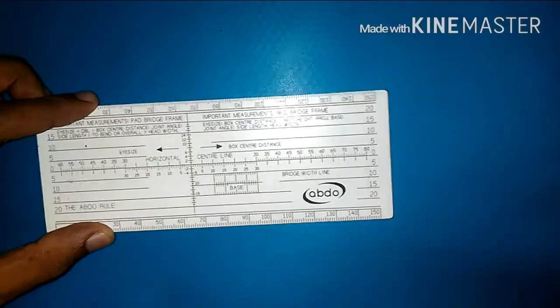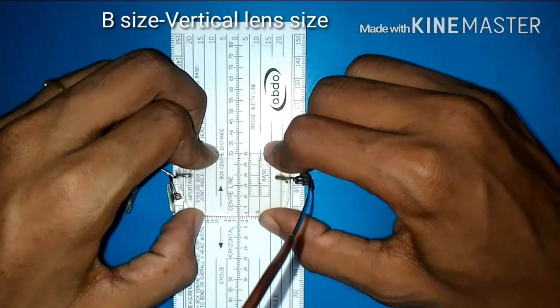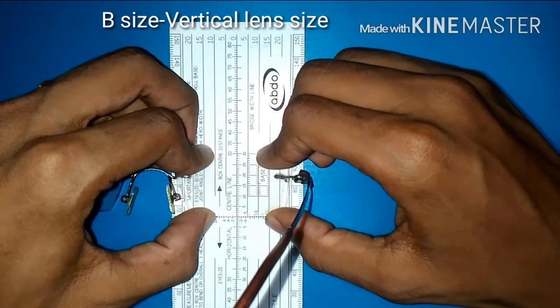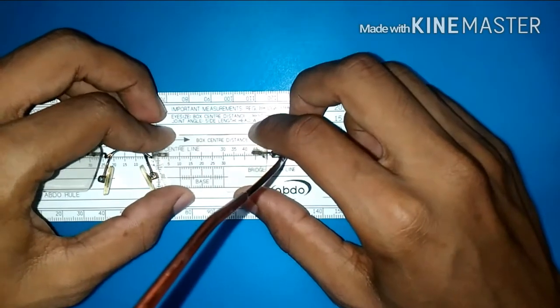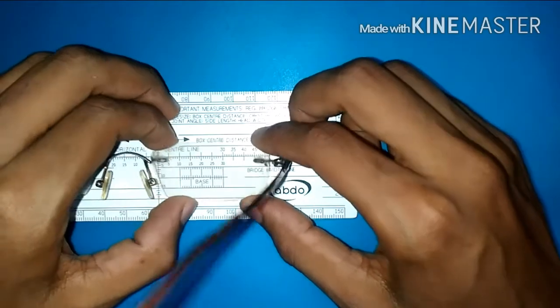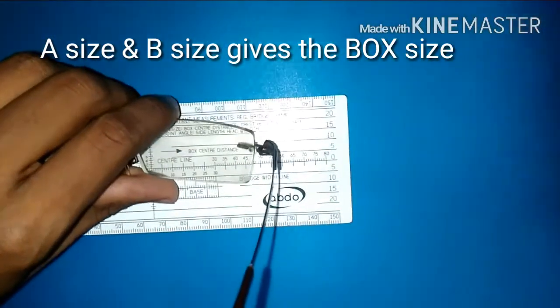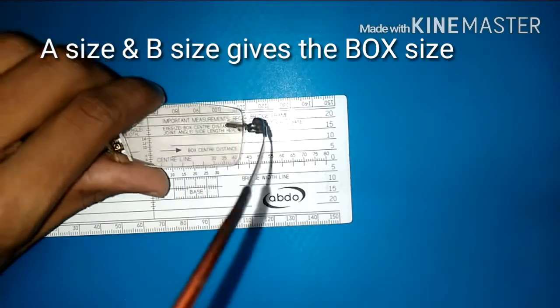For the vertical lens size, place the lower edge of the lens along the vertical line and try to measure the maximum vertical length. The reading is 28, which is the B size. The maximum horizontal lens size is around 52, which is the A size. This is a rimless frame and it gives a direct reading. In cases where a full frame is used, we should add about 1mm to compensate for the two bevel edges, to get the maximum A size and B size.